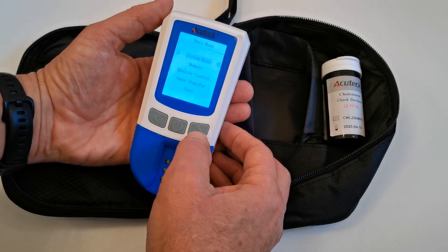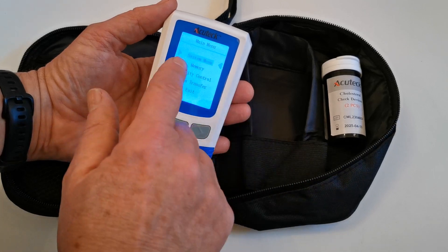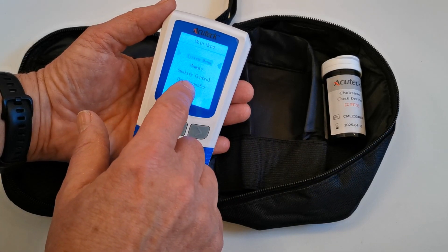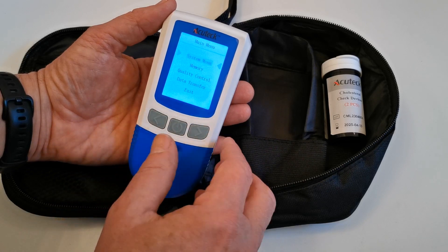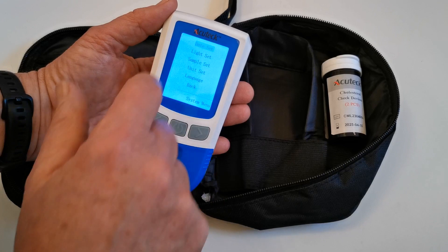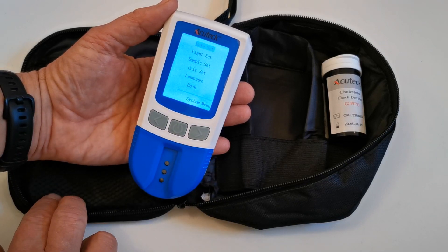If you just hold the power button down, it will give you the system memory. Here's the menu you can use — navigate to memory, quality control, data transfer. I'm going to go into the system menu, so I'm just going to press that again, and it's going to allow me to set the date and time.